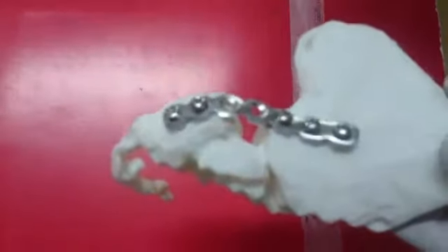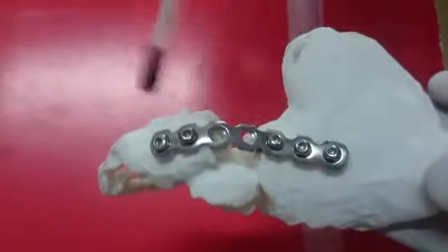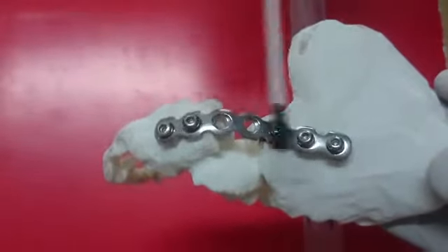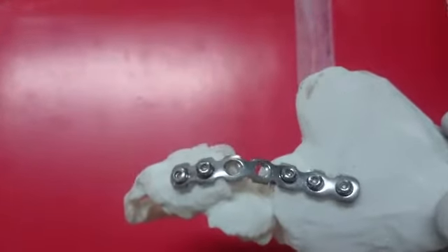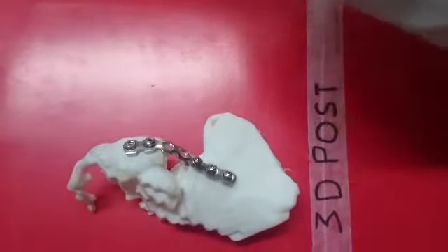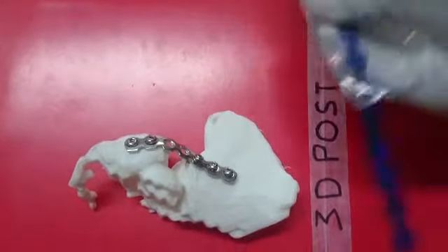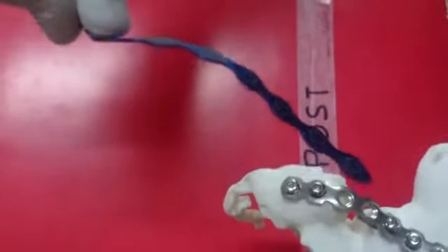This is an almost real-size model of the acetabular fracture that the kid suffered, and you can look here at how these columns are separated. This is the femoral head, this is the ischial tuberosity, this is the sciatic notch, this is the ilium, and this plate was then contoured with the help of these standard templates which are available. Now the surgeon can place the template here and do a pre-contouring of his plate in this fashion.